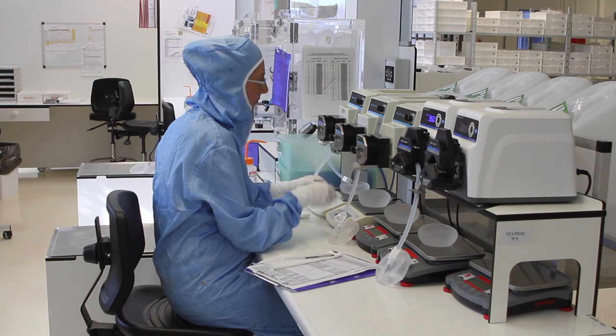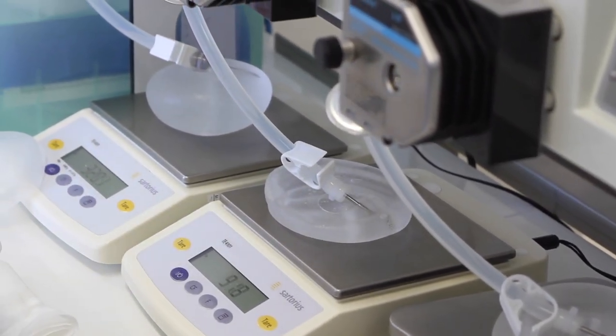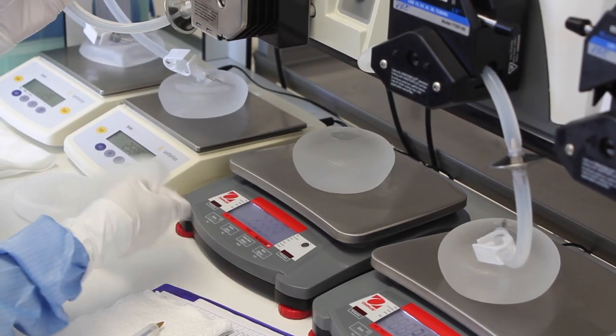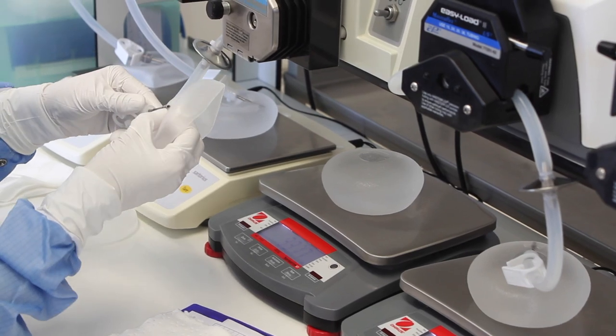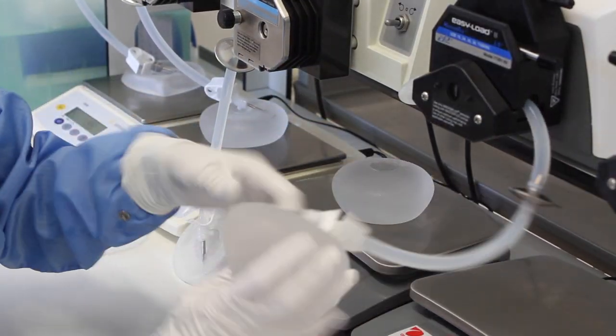So here, as you can see, the operators are putting a needle in this small hole that we left between the patch and the shell. And we are injecting the gel. We have different cohesivity of gel. We are injecting this gel in order to fill the breast implant.